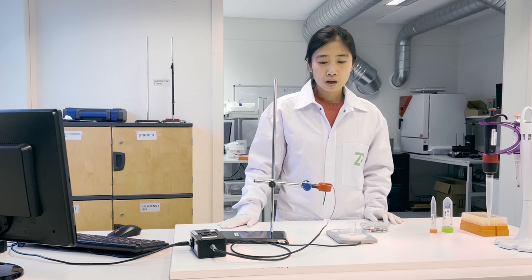Hi, I'm Ling, working in Zimmer Peacock. Today I'm going to give a demonstration on the linearity testing using a glucose sensor in the glucose solution.